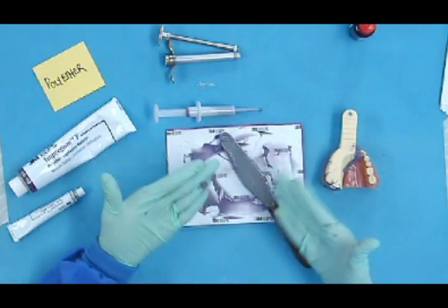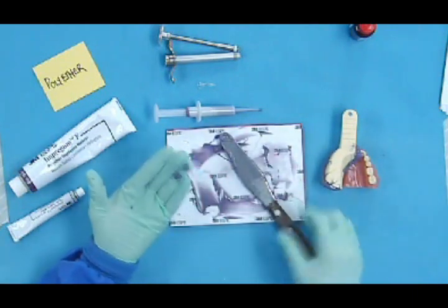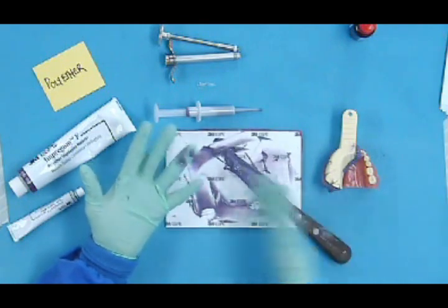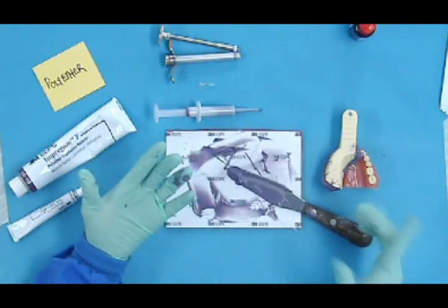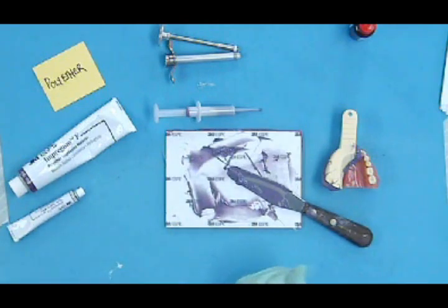These impression materials, these elastomeric impression materials, clean up a lot better off the spatula and off of everything else if you will let them set, let the material set before you attempt to clean it up. Similar to what we did with alginate. Remember, that was a lot easier to clean up if we let the material set.